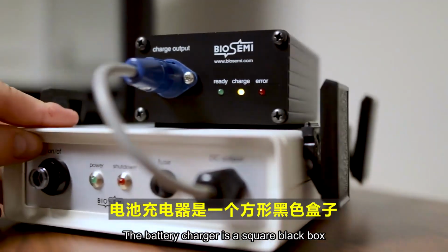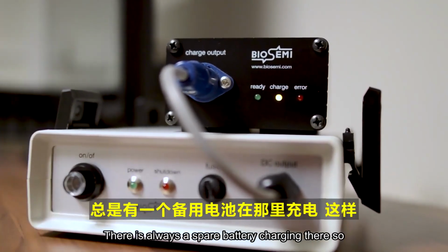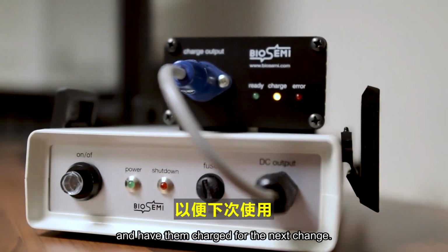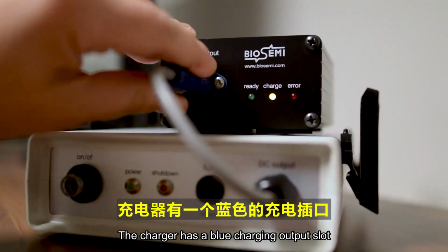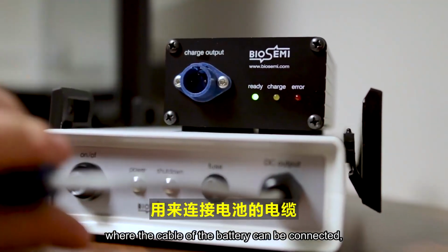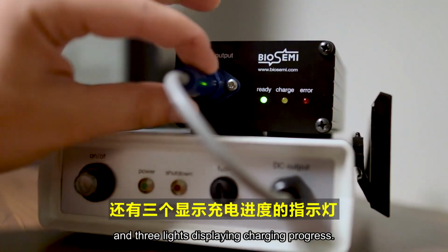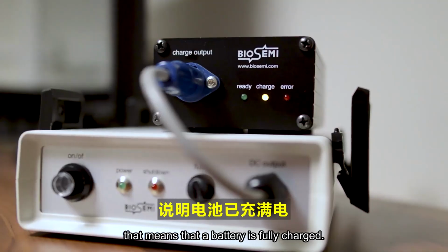The battery charger is a square black box placed on a shelf above your desk. There is always a spare battery charging there so that you can always replace empty batteries and have them charged for the next change. The charger has a blue charging output slot where the cable of the battery can be connected and 3 lights displaying charging progress. When the green light marked ready is shining, that means that the battery is fully charged.